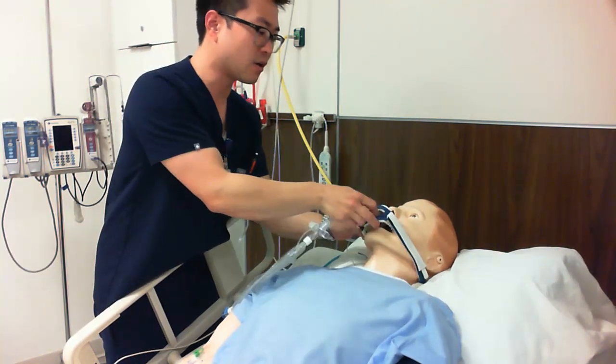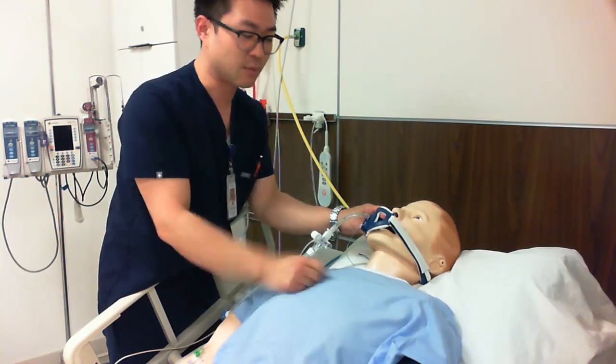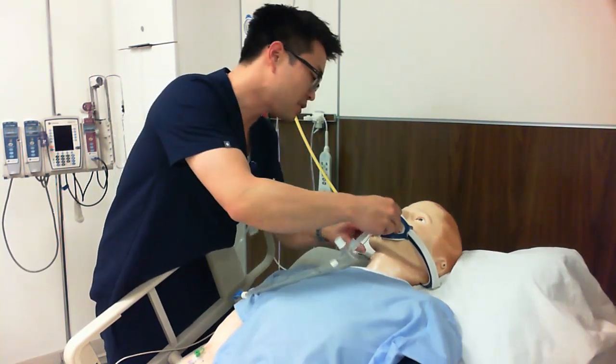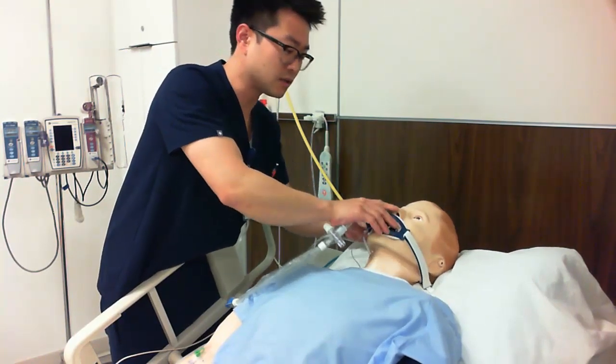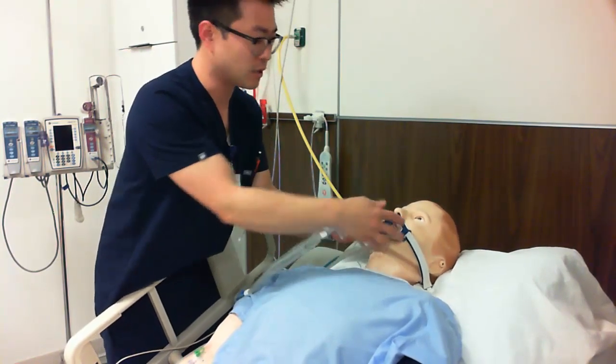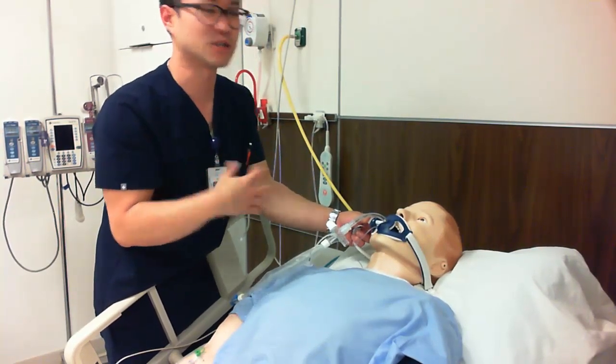But when we pulled it out, or the patient pushed that tubing out, it's now in the incorrect position, and we have to put that back. What happens in this event? We have to call our RT and let our doctor know. We as nurses aren't going to be pushing this tube in. We don't readjust. Just because it came out a couple of centimeters does not give us the right as an RN just to shove it back in.